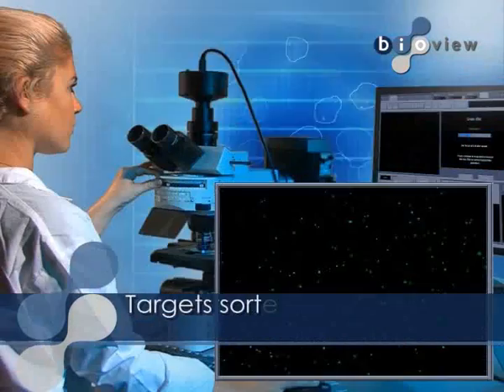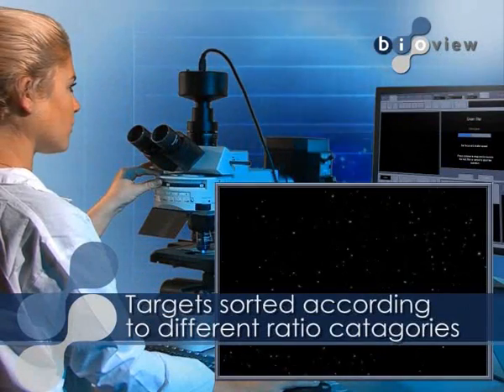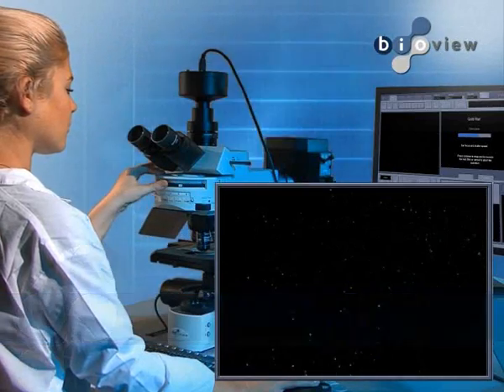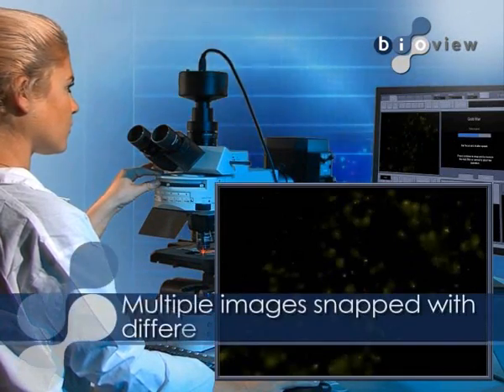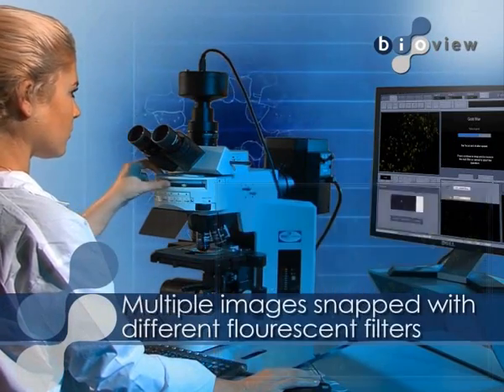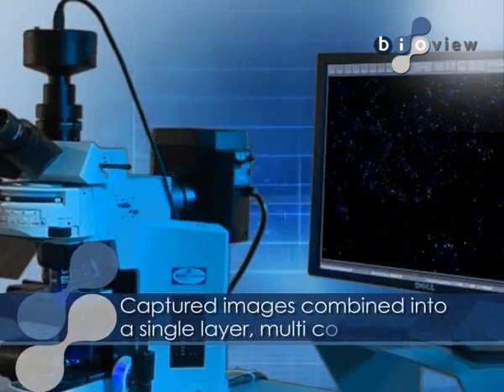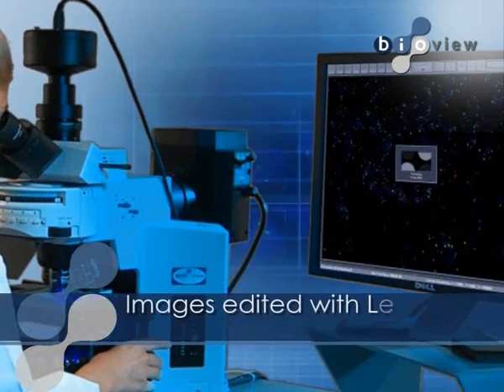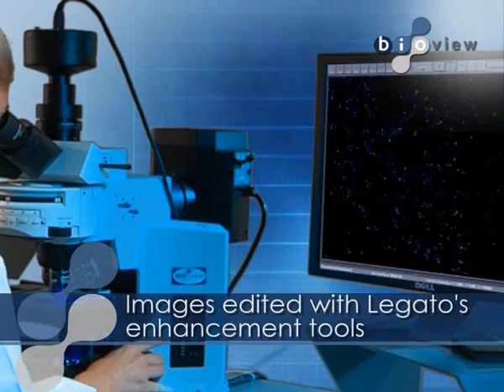For example, the amplification factor is calculated automatically and targets are sorted as per their signal pattern. Multiple images are snapped with different fluorescent filters and then combined into one comprehensive color image. Images can then be edited with Legato's advanced image enhancement tools.